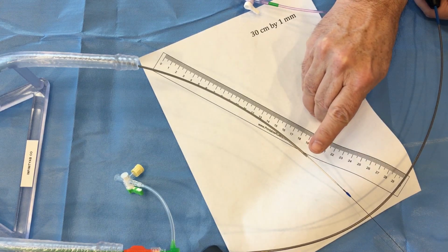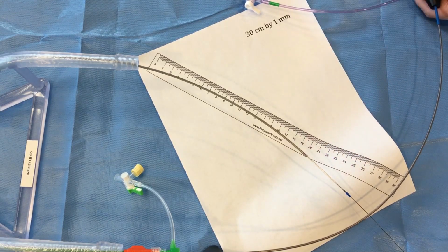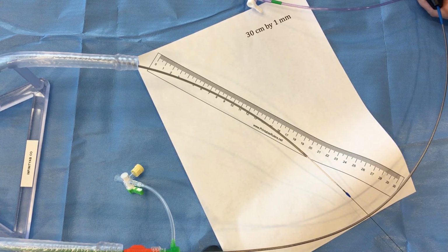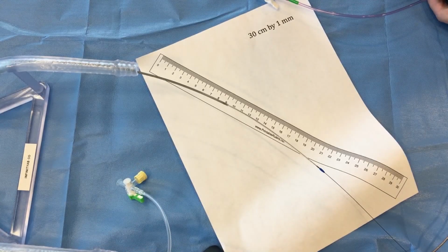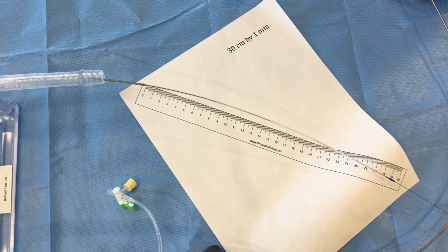The sheath marker is matched up to a marker within the balloon, and a total of 5 centimeters is exposed. If the lesion is 55 millimeters, another additional length of balloon can be exposed for accurate sizing. The sheath has been retracted even further to expose approximately 10 centimeters of the balloon. The entire balloon length is now exposed.